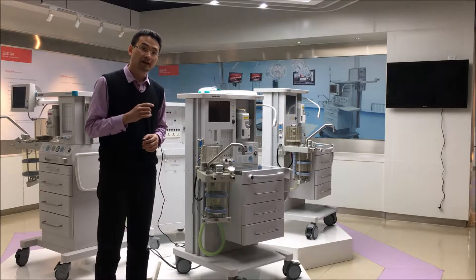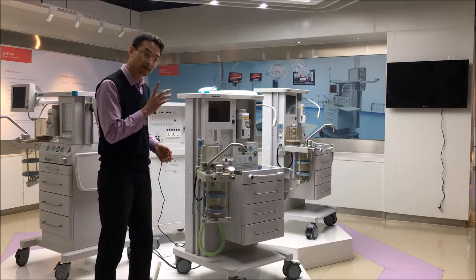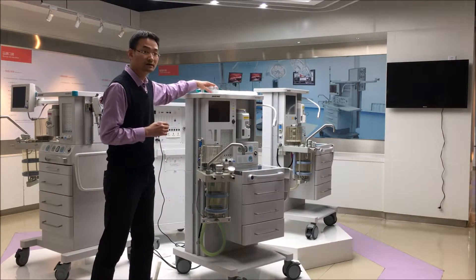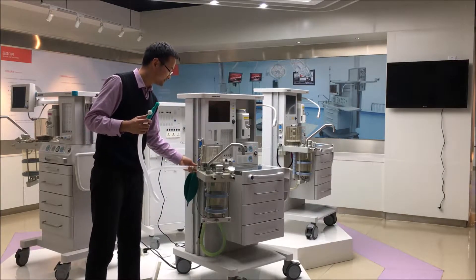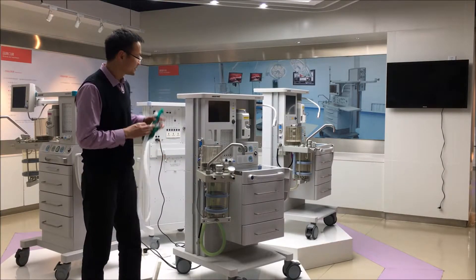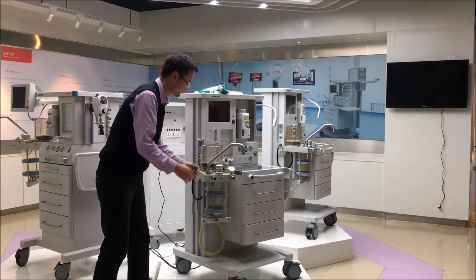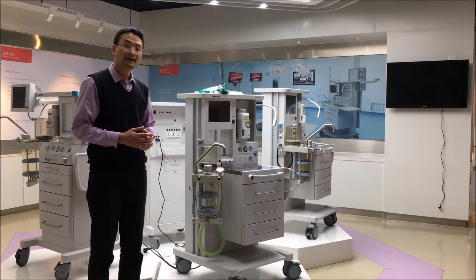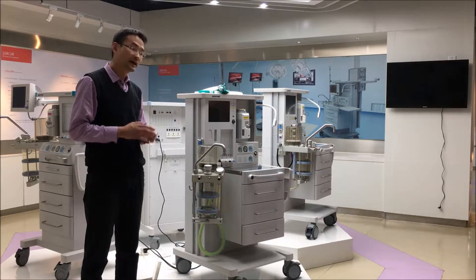In the old days, before the breathing system came out, the anesthesia machine was very simple. The doctor connected the open circuit to the CGO and used their hands to ventilate the patient. After the technology of the breathing system came out, the breathing system acts just like the doctor's hands. So it is very important to have a good breathing system in operation.